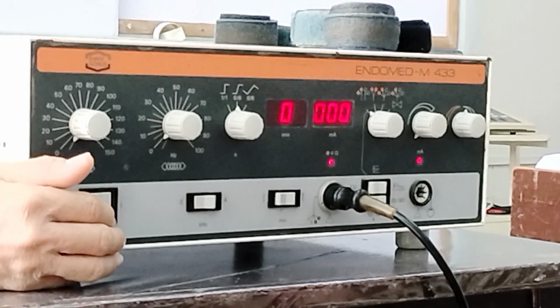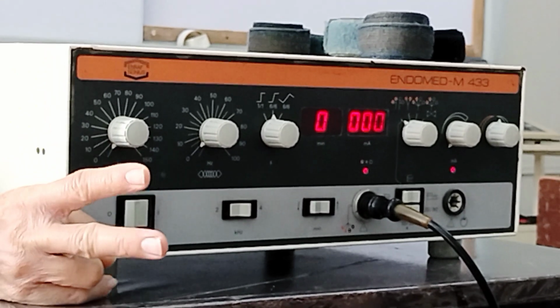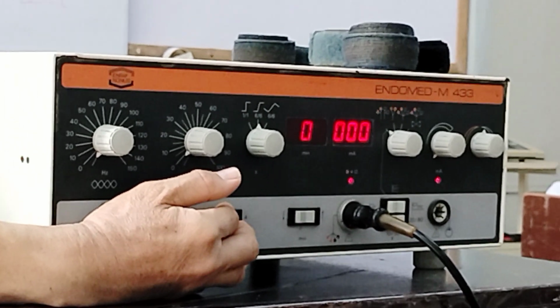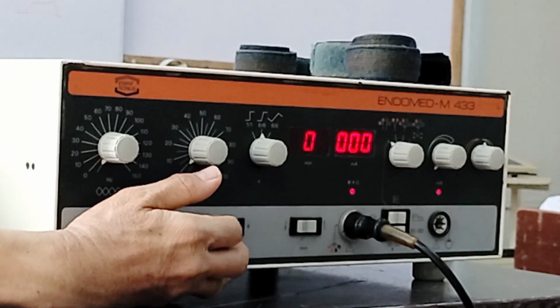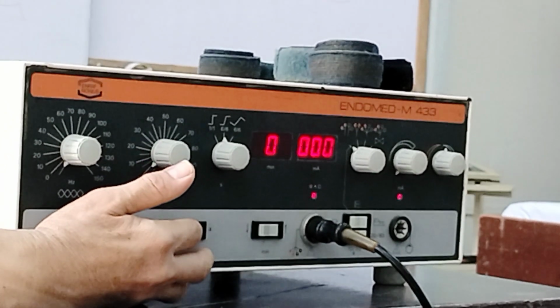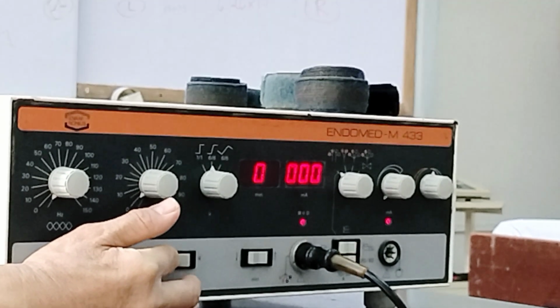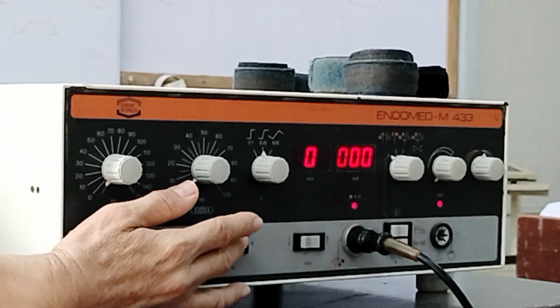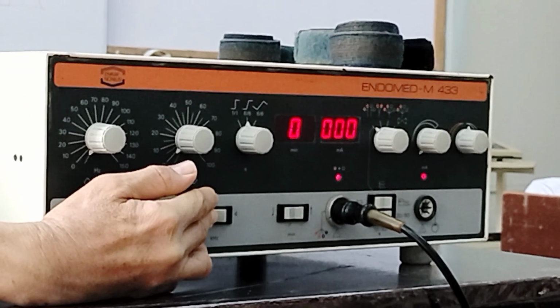As we mentioned, in IFC, interferential current, there will be 2 medium frequency currents. So here, if you're going to adjust this one, that means that you already have adjusted one of the medium frequency currents. With regards to selecting for this, if it is for pain relief, you choose 4 kilohertz. If it is for muscle stimulation, muscle contraction, you have to use 2 kilohertz. The lower the frequency there, the more it stimulates the muscle. Again, pain relief is 4 kilohertz, then for muscle stimulation, contraction, 2 kilohertz.